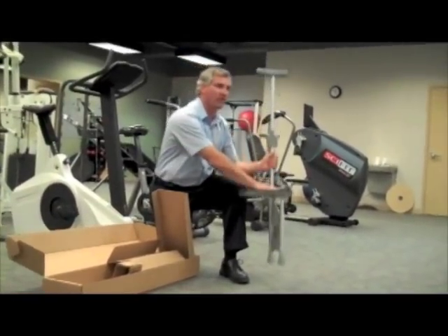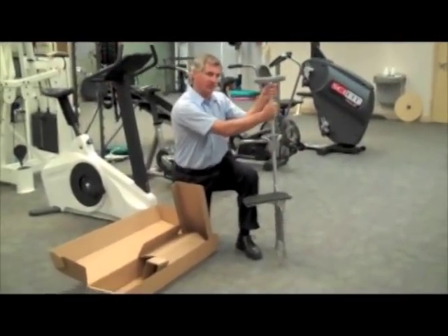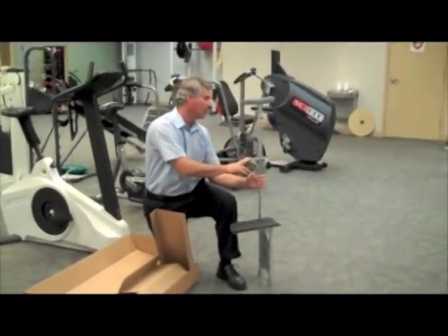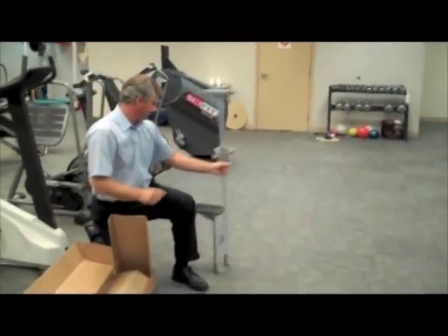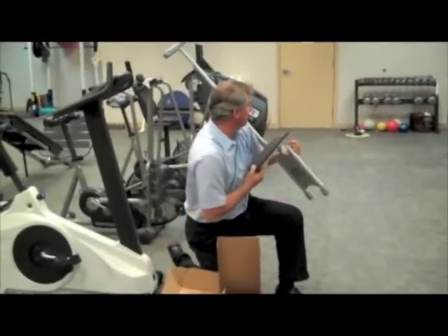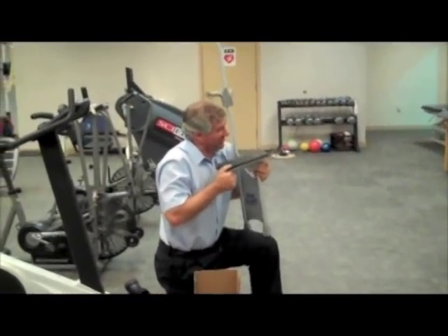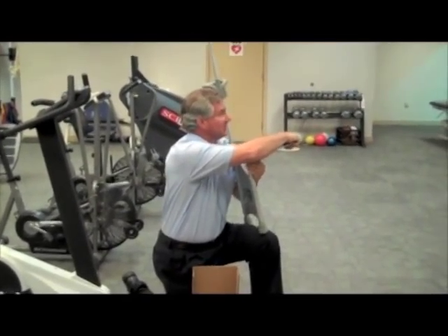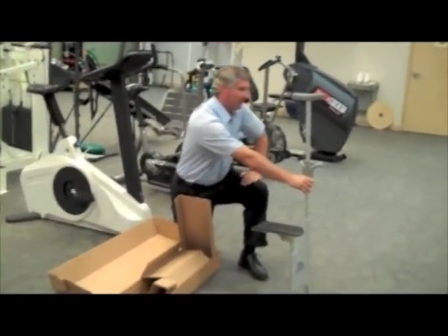This is how you adjust it. We call this an 'e-cradle.' You get that to the right height. Invert the stabilizer, get that to the right height, and the handle is just for comfort — we don't have any adjustment gradations on here, it's just for the length of somebody's arm. To go right and left, you basically just pinch. You've got a double snap button under here; you pinch that and you just turn this around. That's hard to get your fingers in and we know it. And that's how you go from right to left — that's the only thing you have to do.